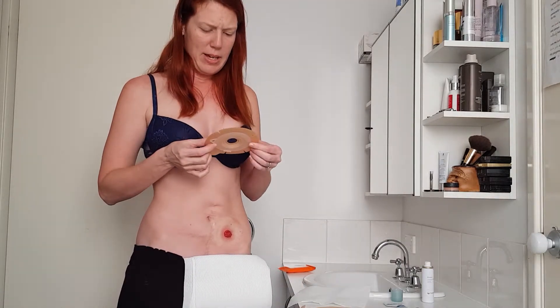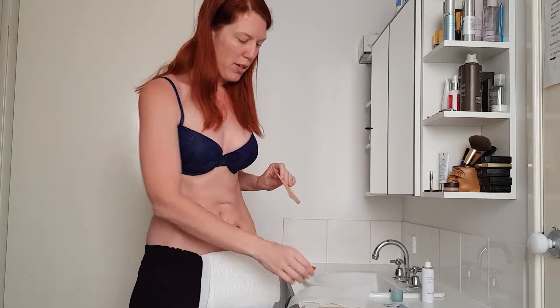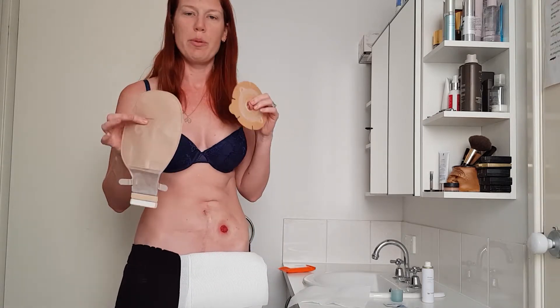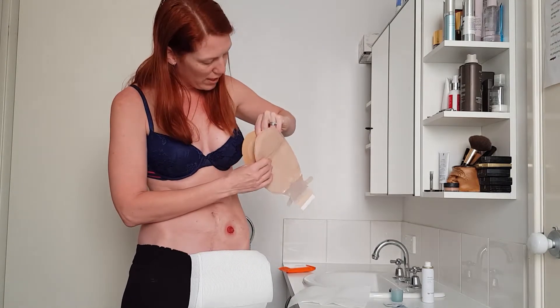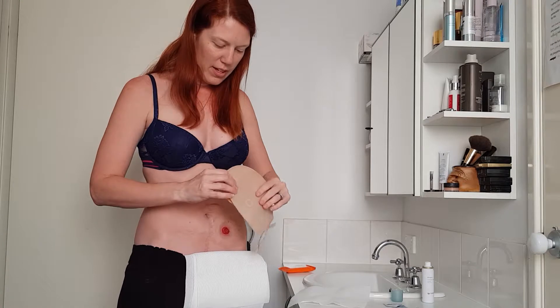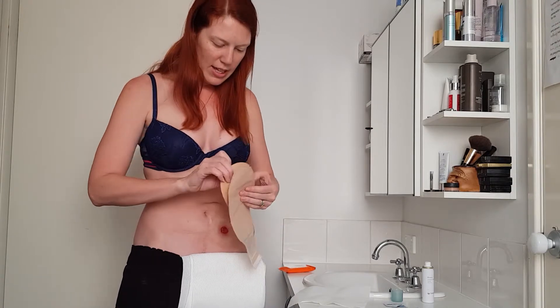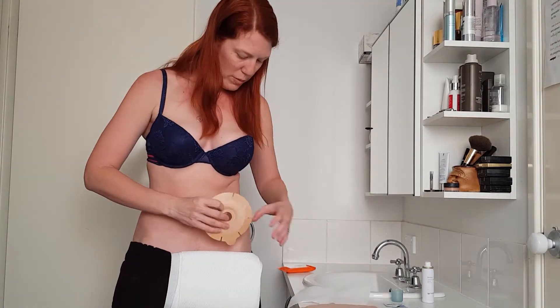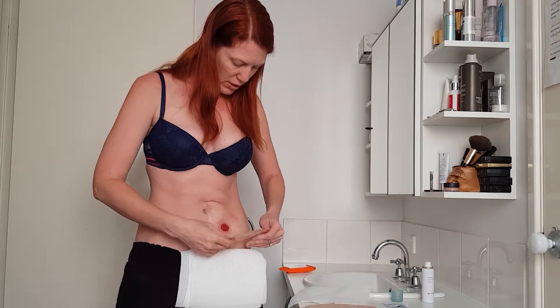The first thing I noticed about this base plate is it's huge. It has these really cool little slits that are better to go around your belly button and things. It also has a little lip here that you can pin your base plate onto. I always use two pieces — there's one or two piece options. It causes a little bit of confusion because I actually need to hook that lip onto there to click it on. And I don't like my bag straight on because it always stabs me in the leg, so I need to orient the base plate so that part is out. I'm probably going to end up sticking the base plate like that — yes, fits relatively well.